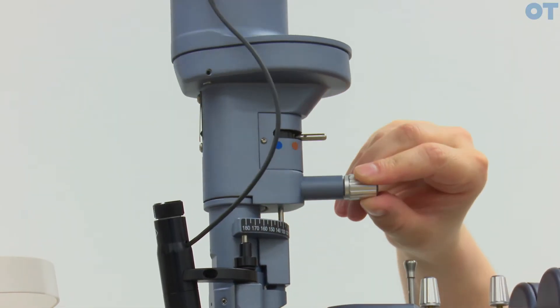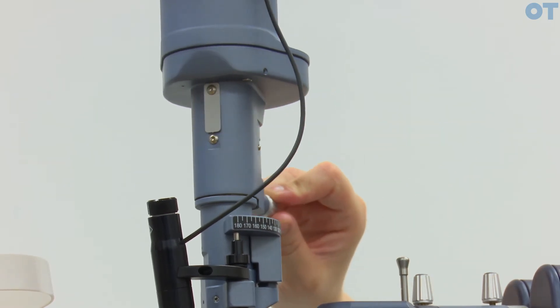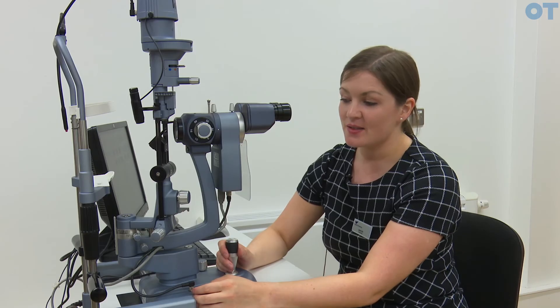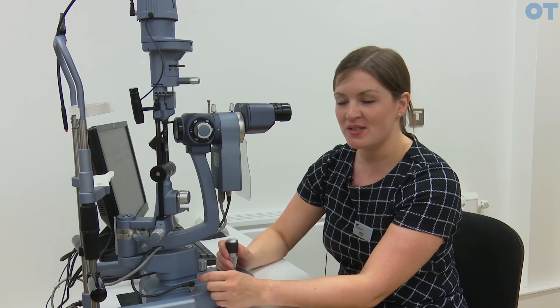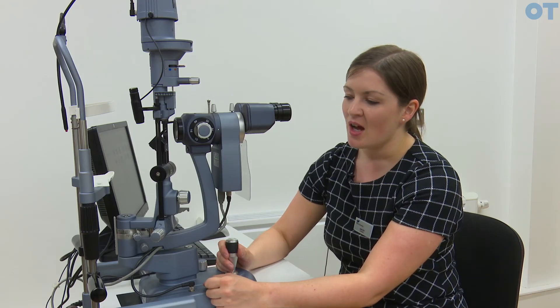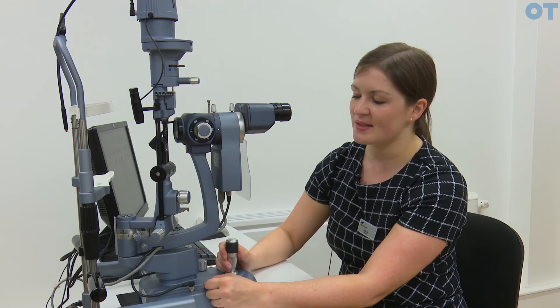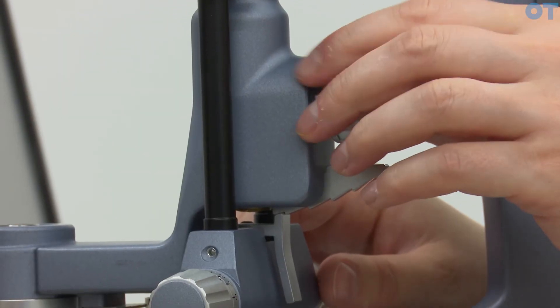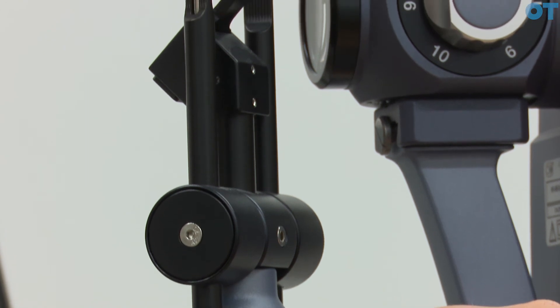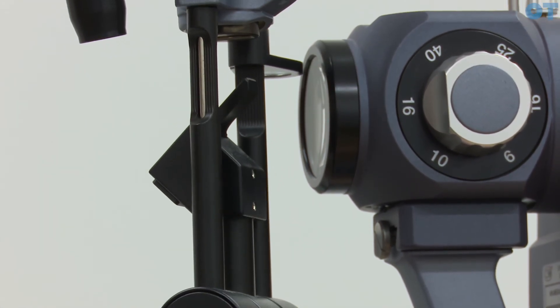Some techniques require the beam to be rotated horizontally, and you do that by rotating this top section. There are techniques where you would prefer the illumination system and observation system not to be aligned with each other, and we do what we call decoupling of the illumination system. Essentially you are loosening the lock that keeps the two aligned and rotating the illumination system away from the observation system.